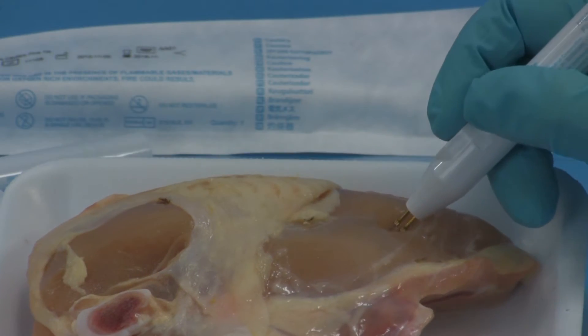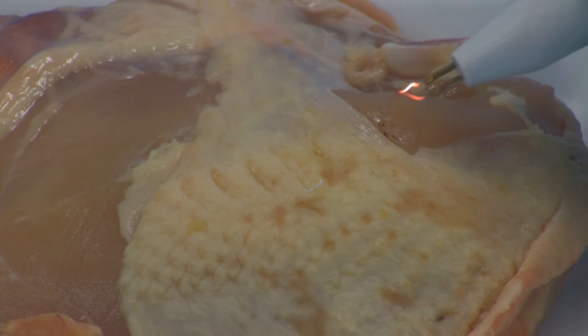Applying excessive force on the cautery during use may cause tip to bend or break. The cautery tip will remain hot immediately after activation and may cause inadvertent burns to the user or patient.